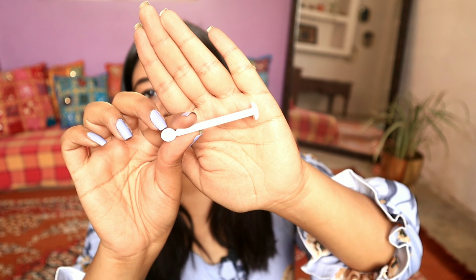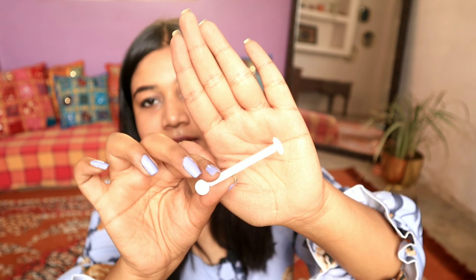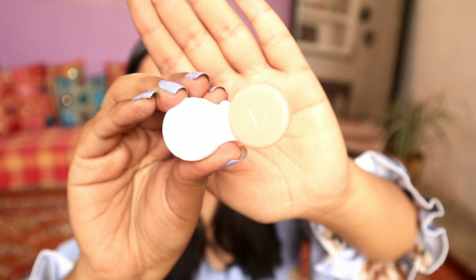This is a one-color soft contact lens submerged in buffered saline solution. You also get a dual-ended applicator — one end holds the lens and the other picks it from the solution, because you can't pick it with your bare fingers as it can damage the lens. The purse also includes a lens container in a very nice pastel color. You pour lens solution in it, submerge the lens, and change the solution every few days.